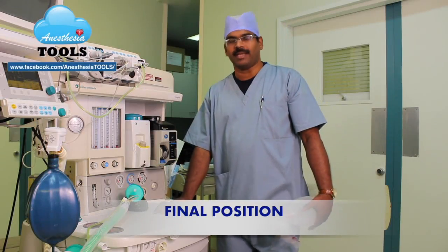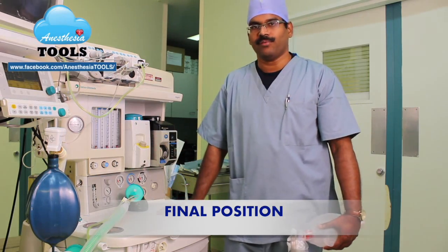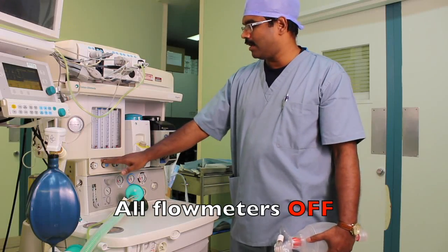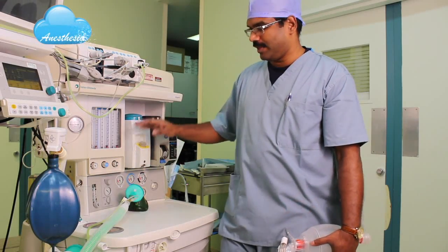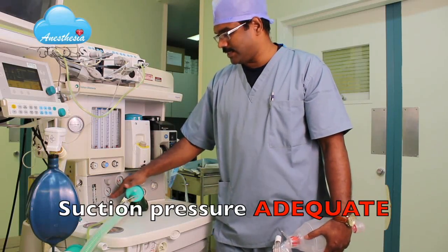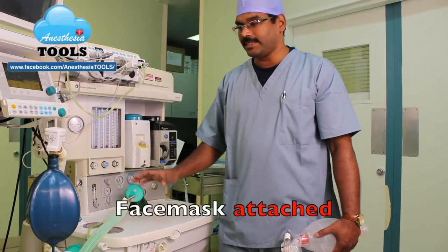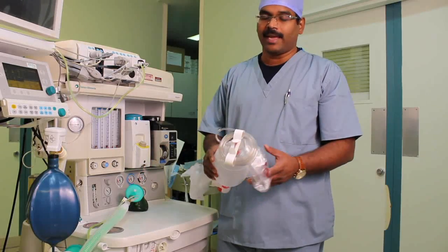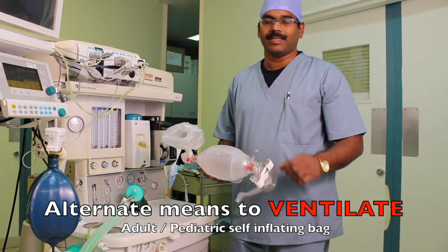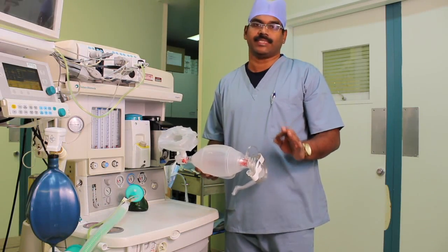The machine checkout is complete. For the final ready position: make sure all the flow meters are off, vaporizers are off, APL valve is fully open, adequate suction is available, and appropriate breathing circuit and mask are attached. Ensure you have an alternate means of manual ventilation with an independent source of oxygen in case of any equipment failure. You are ready for the first case.